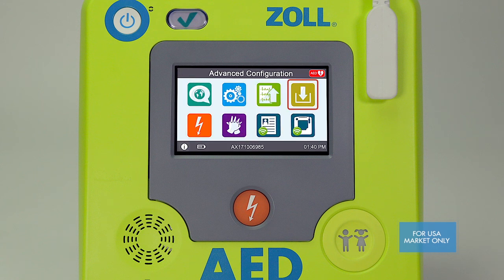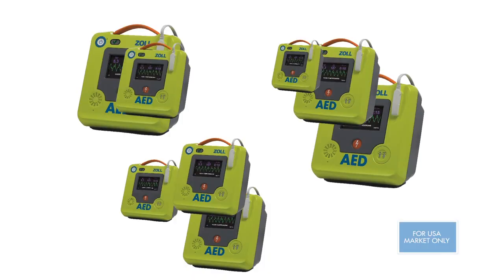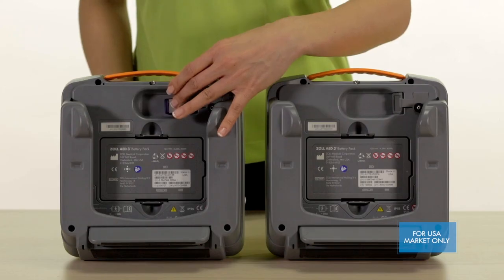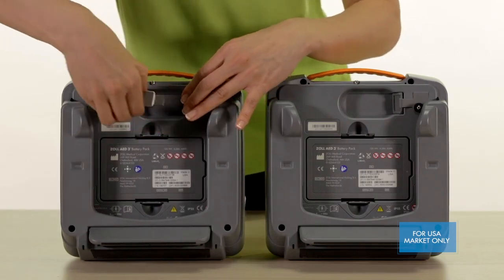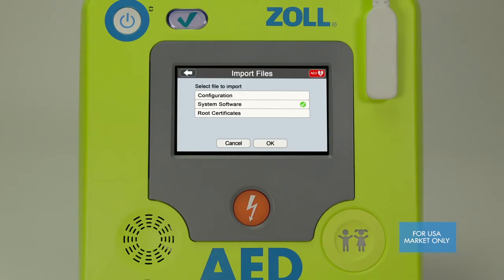The yellow arrow icon is the import function, which allows you to import configurations from other AED3 BLS units. This is useful if you have multiple Zoll AED3 devices and wish to configure them all the same. Simply insert the USB drive with the configuration files from the AED3 BLS device you wish to clone into the USB port, select what types of file you wish to clone, and select OK. This will change the configuration of your AED to whatever configuration you've selected from your USB drive, saving you time if you need to configure multiple AEDs with the same settings.